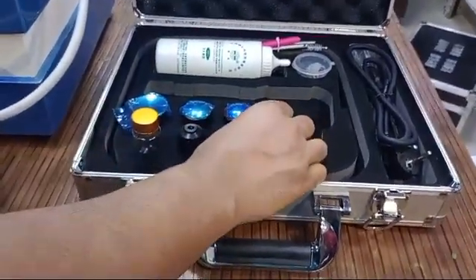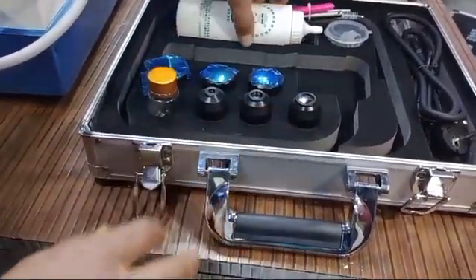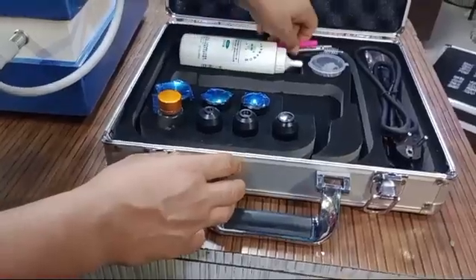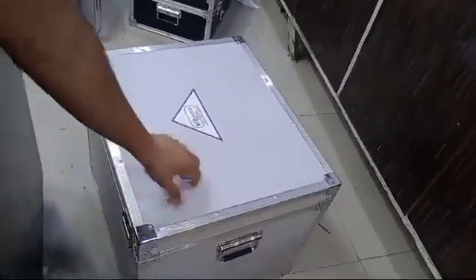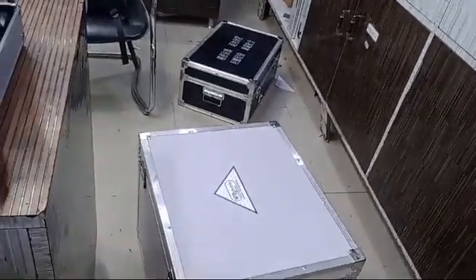These are the different applicator heads for different treatment areas, and this is the gel. This is the main cord. You will get a carry case for the accessories, and these are the tools to open the device. This is the box the machine comes in — a solid box to keep it protected from damage.